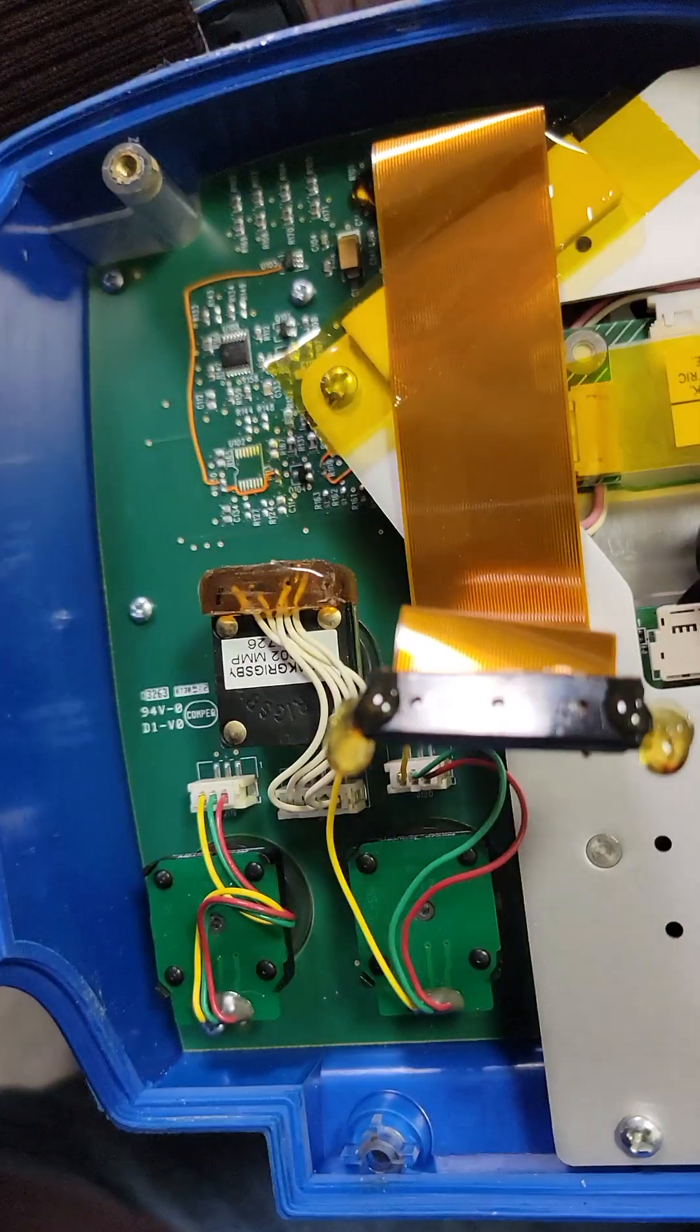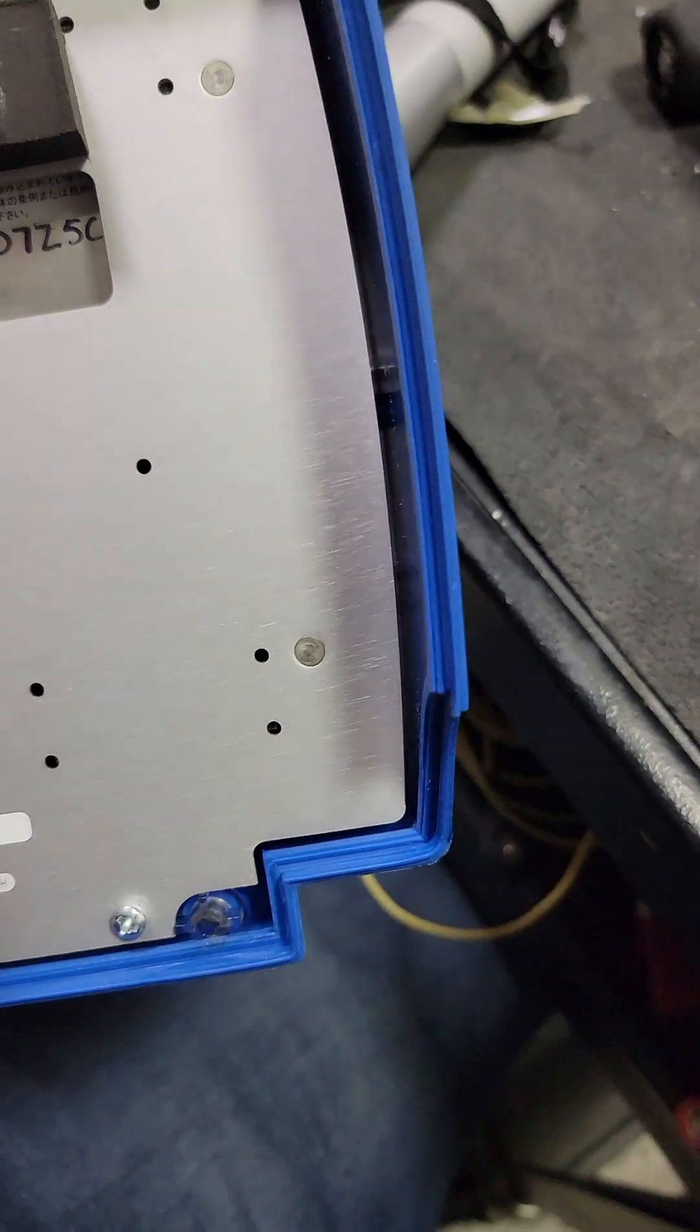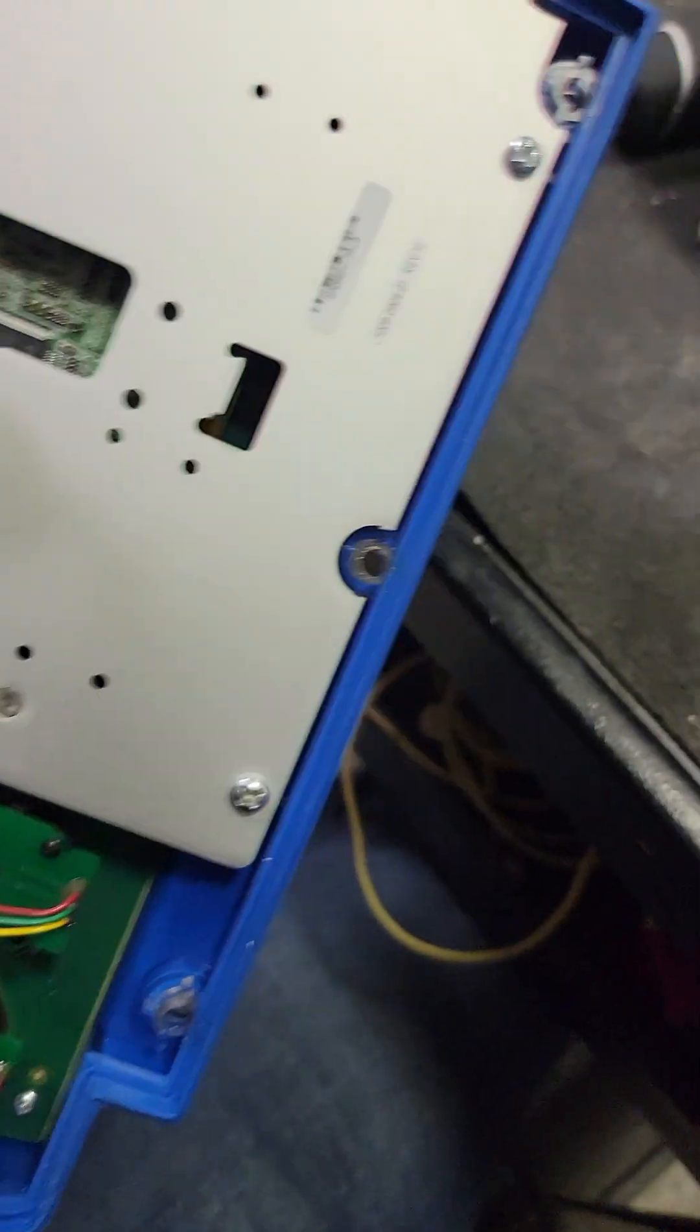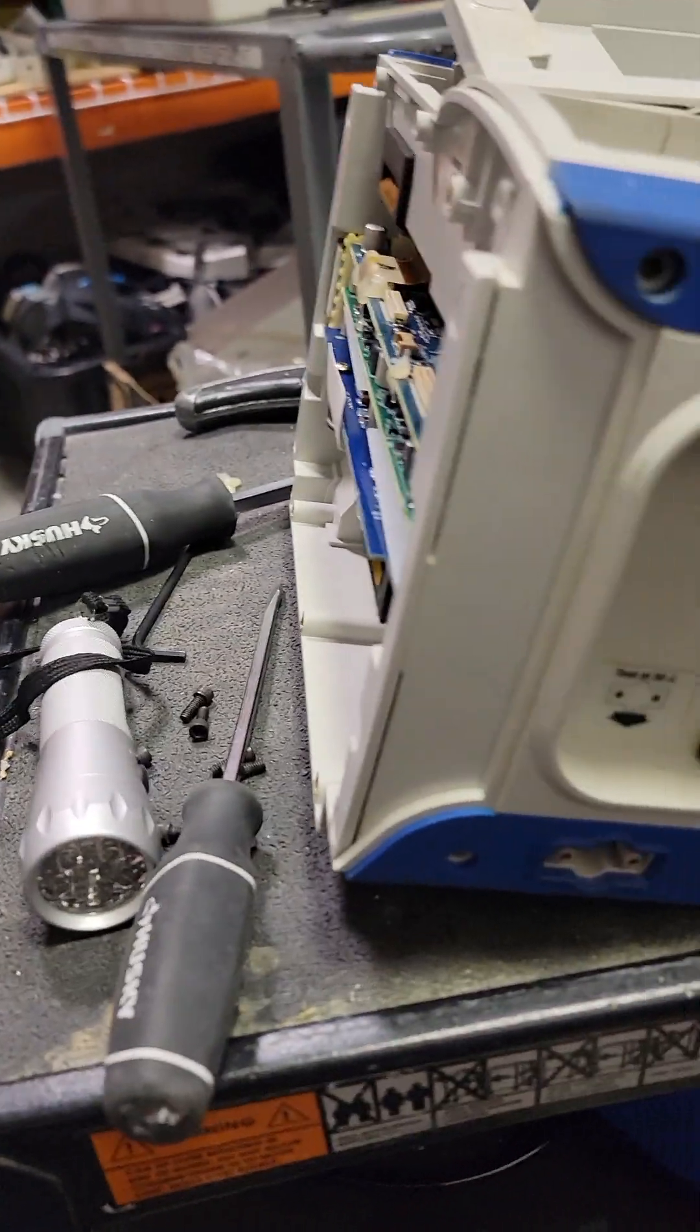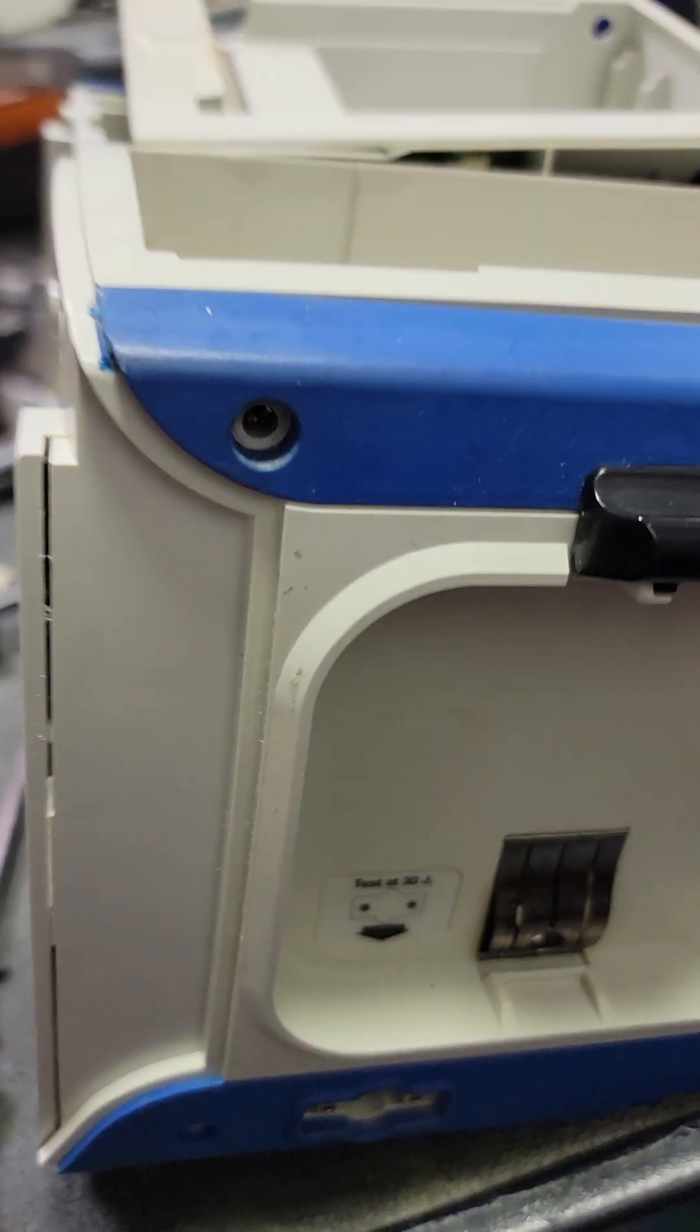Okay, there's our display and button backing. Here's our boards. Okay, so I've got to take the side out too. These boards, you can see this whole setup here, it's not going to let me pull it.